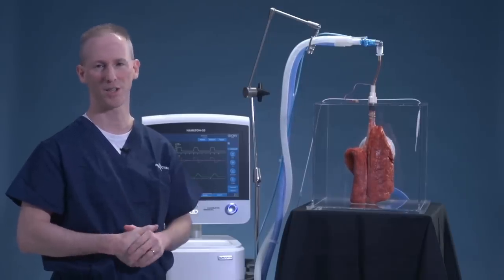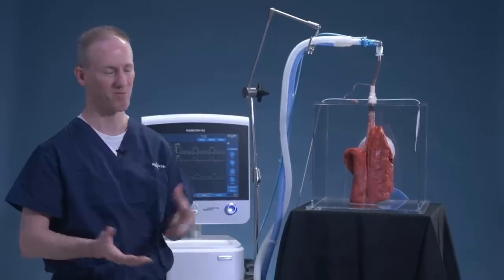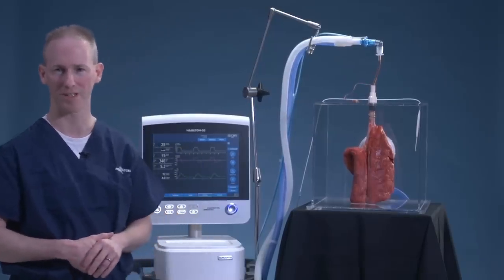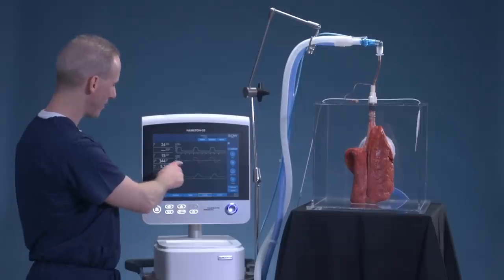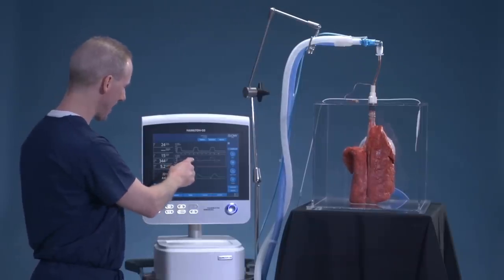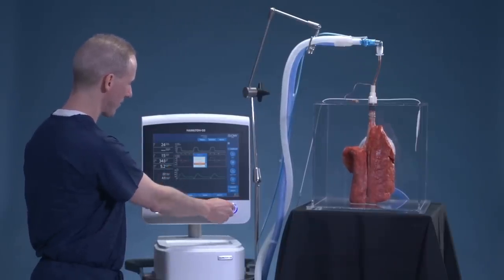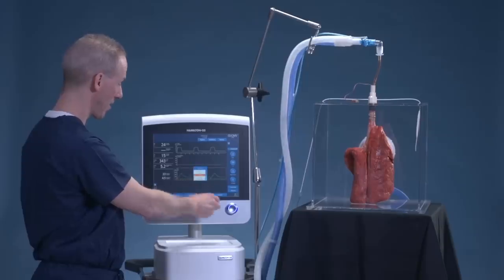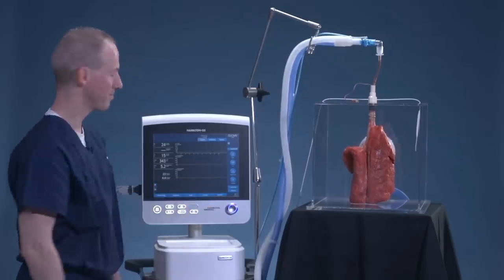This technology has been around for over 50 years, and it's only fairly recently that we're starting to embrace and learn what it truly can provide at the bedside. With the G5, with a simple touch of the screen, I can change this flow to read esophageal, and I can change this volume to read transpulmonary.